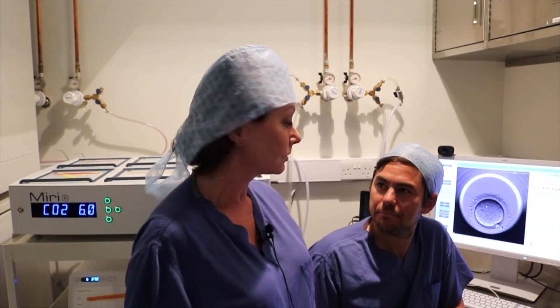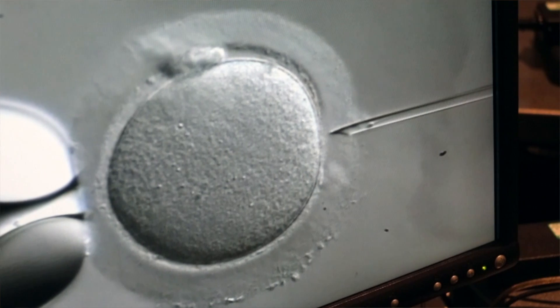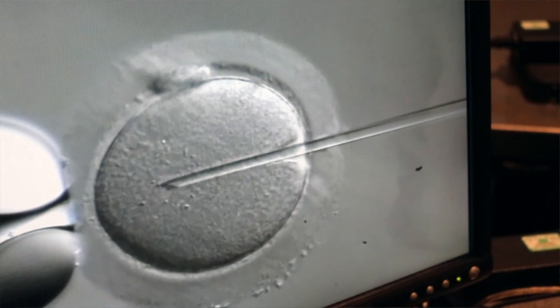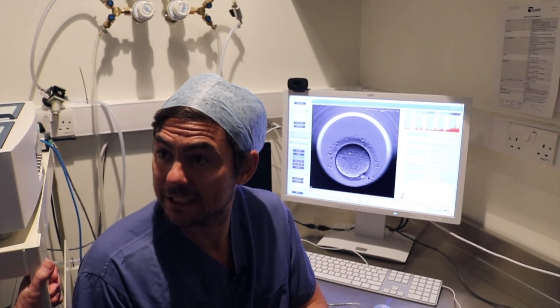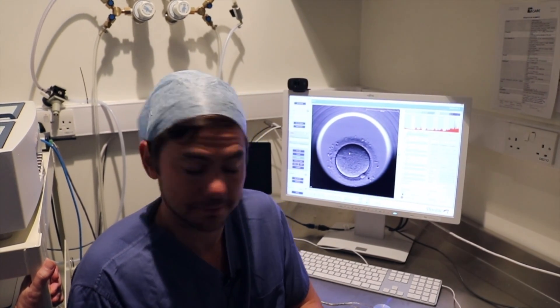I'm here with Rob Smith from Care London and we're looking at how an embryo develops. So Rob, what are we doing here now? What we're doing now is we've taken that egg we've just injected, we've placed it into a time-lapse incubator and now we're going to monitor its development. We're going to see if it fertilizes and we're going to see how the embryo develops.